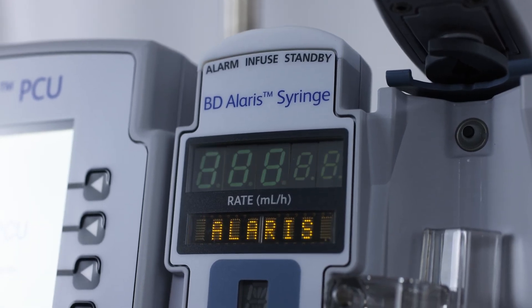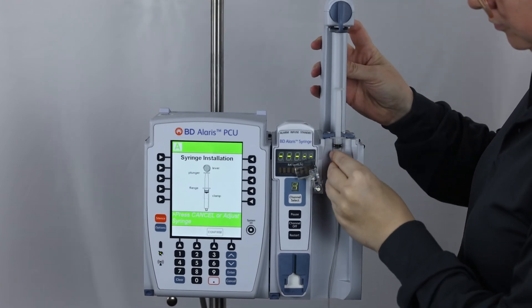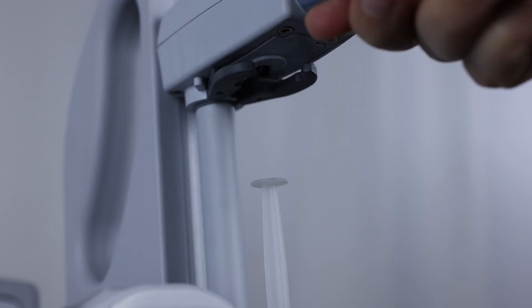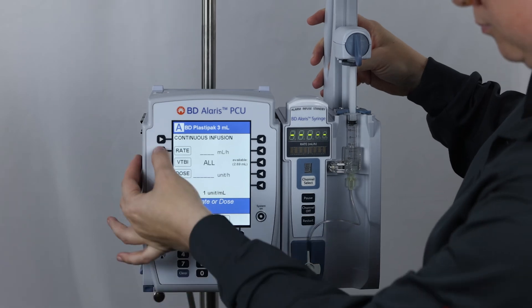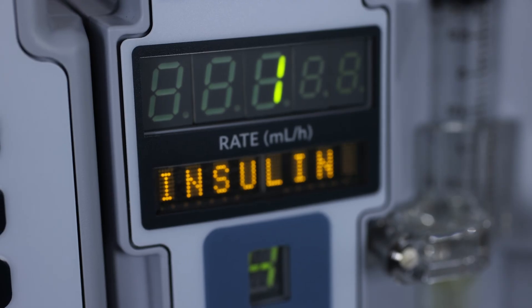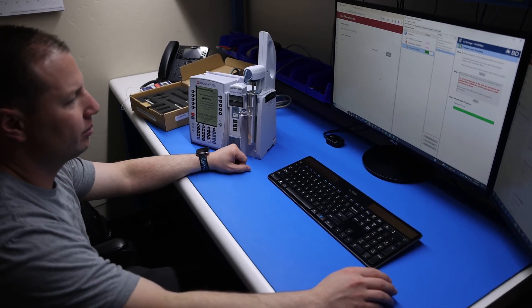The bright color screen and numeric keypad make it simple to program an infusion. Intended for the delivery of fluids, medication, enteral nutrition, blood, and blood products, the Alaris syringe module uses standard, single-use, luer-lock syringes to deliver fluids to patients. Guardrail safety software helps prevent dosing errors when programming the pump, and a drug library allows for customization specific to each healthcare facility.